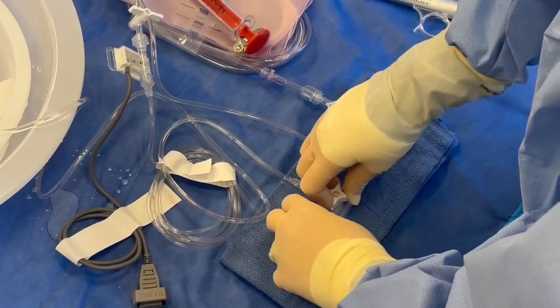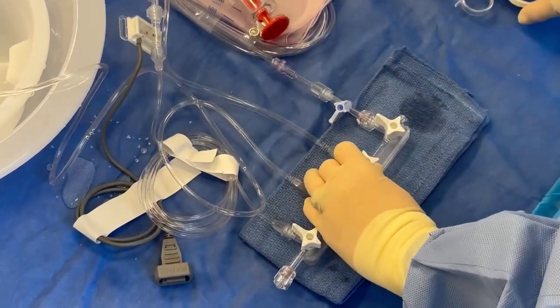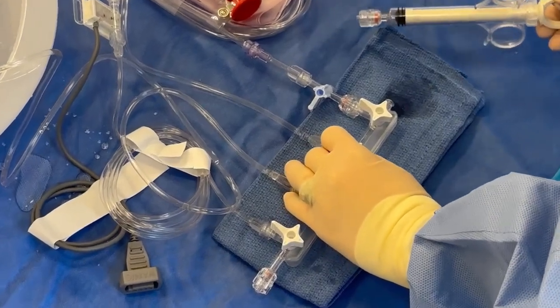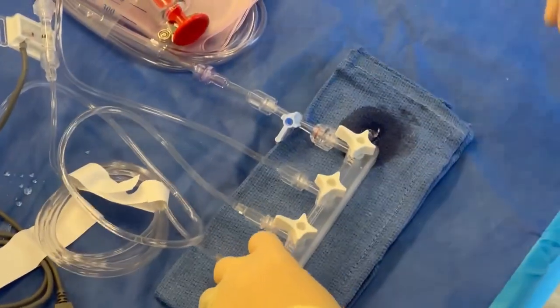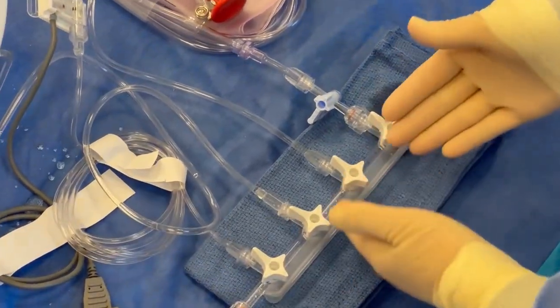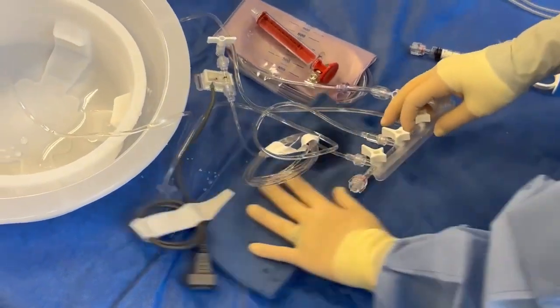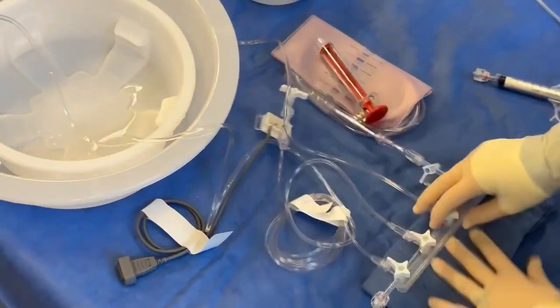I'm going to turn them back off. Now while I was flushing those, the contrast was bleeding back, because in theory it's more sticky — it's viscous. So as it bleeds back, I'm tapping, making sure that that little bubble right there gets dislodged. Now you understand the importance of my cloth right here too — it's just to help me keep my table a little dry, and I can come up here and cheat through that.